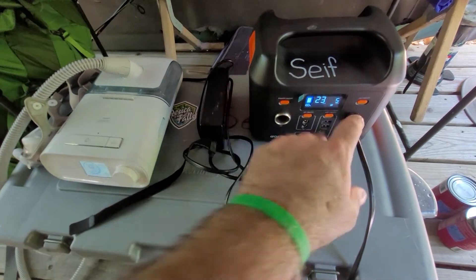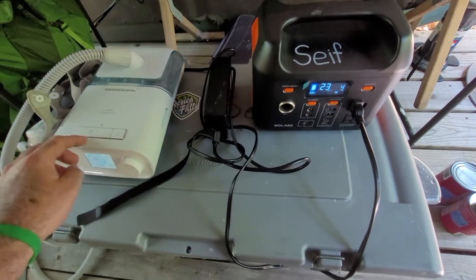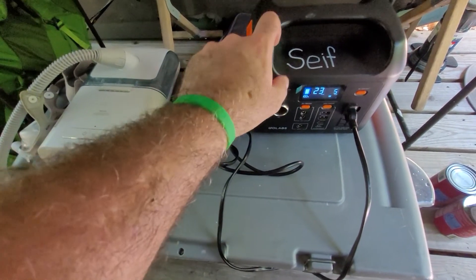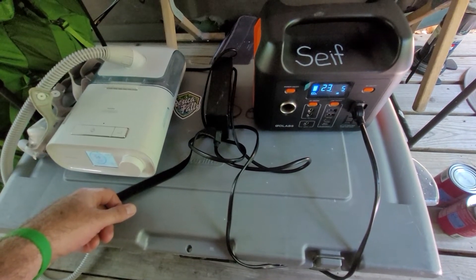You can see here it usually hangs out around 3 to 5 watts when I'm awake. I don't know exactly what it ramps up to during the night, but typically I'll wake up and about 30% of my power is gone.